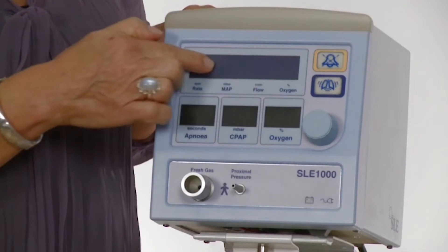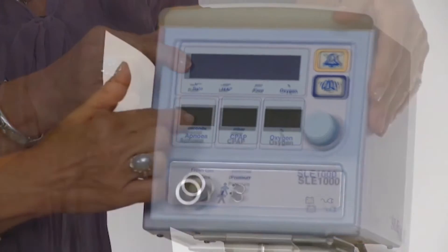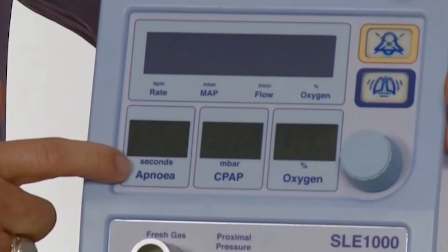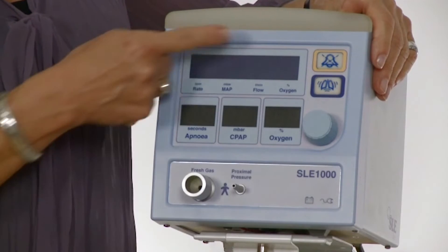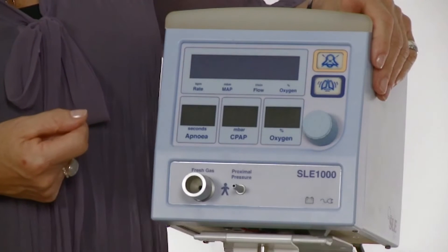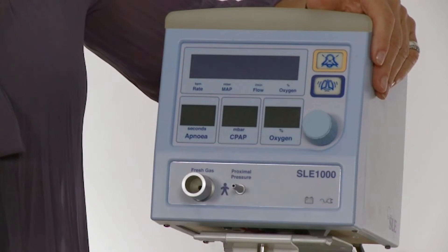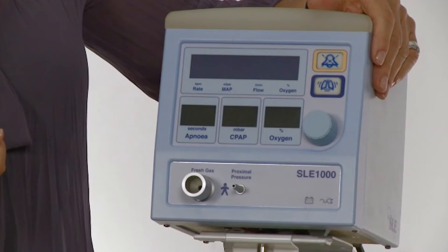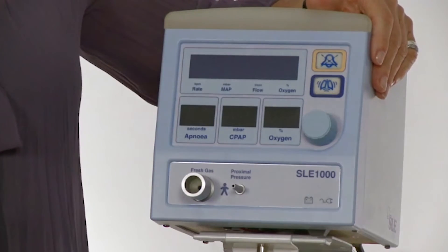Turning to the front of the SLE1000, the LCD screen displays measured parameters, functions, alarm messages, alarm history and battery status. The 3 LED windows display the set values for the oxygen, the CPAP pressure and the apnea time. The push and turn wheel selects and adjusts the parameters. The audio pause button — indicated by a crossed-out bell — will mute an alarm for 120 seconds. If the audio pause button is pressed when there is no alarm present, it mutes the unit for 120 seconds, but should an alarm occur it will only be visually indicated. Pressing the audio pause button again will revert the unit back to normal operation.